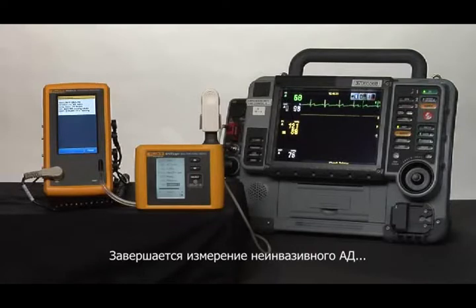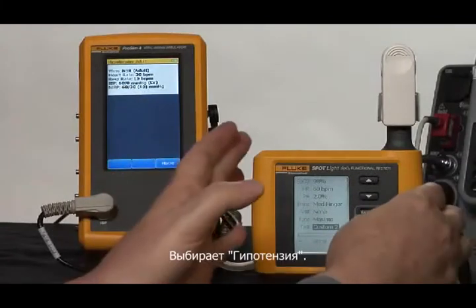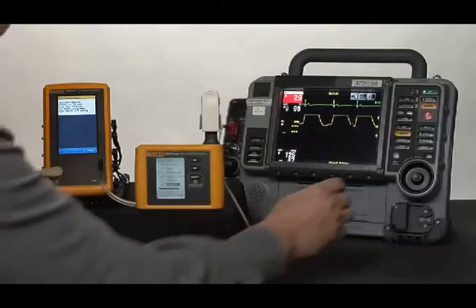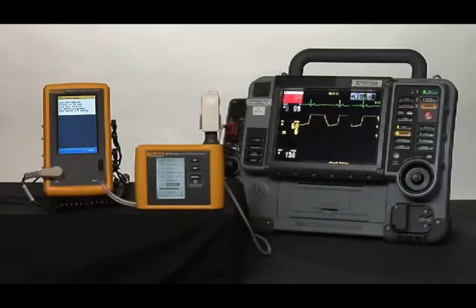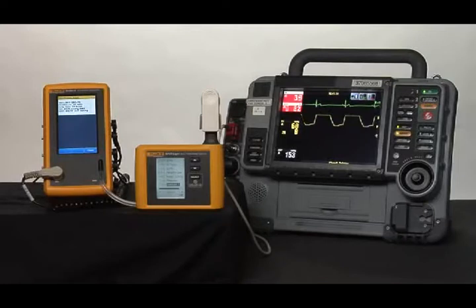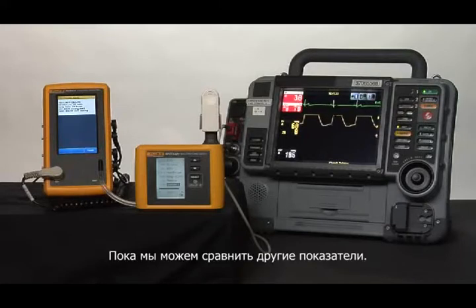We'll wait for our NIBP reading to complete. On the ProSim 4, we go back to the home screen, pick hypotensive. On Spotlight, we'll switch to custom 1. Start another NIBP reading on the device. We now set off low alarm limits. And we're only waiting for the NIBP reading to complete. We can compare all the other values.